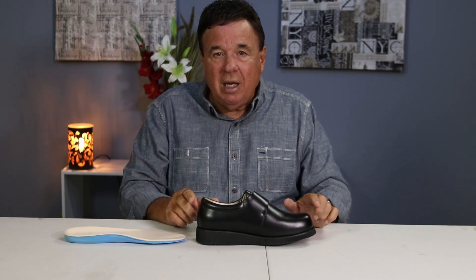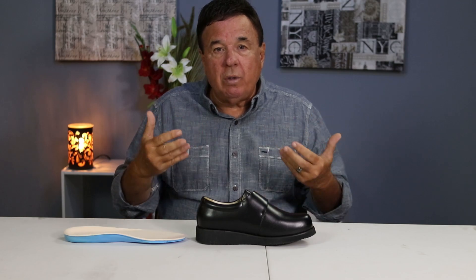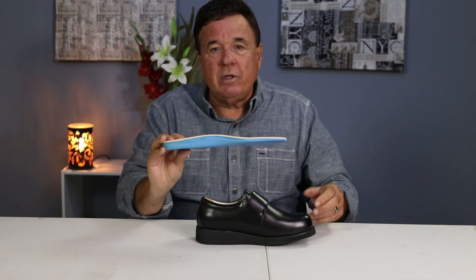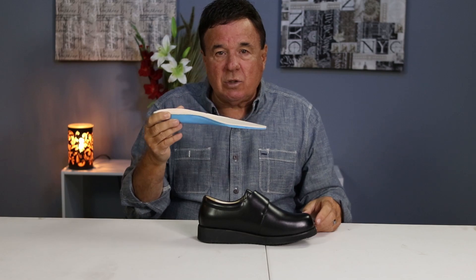This can also be made in a 10E and a 14E through our special order program. Our special order program is on the menu — you'll see another video explaining how the program works, and I'll give you all the verbiage and details. Also, with every one of this particular style — most of our styles — you will get three sets of these inserts.